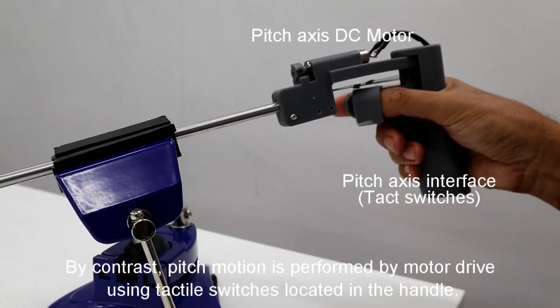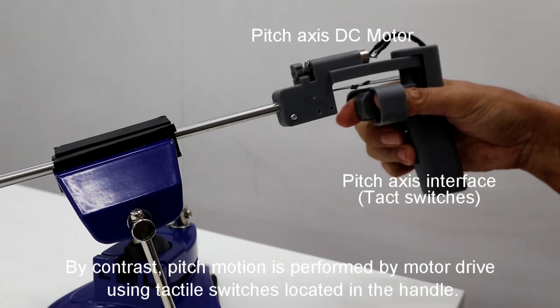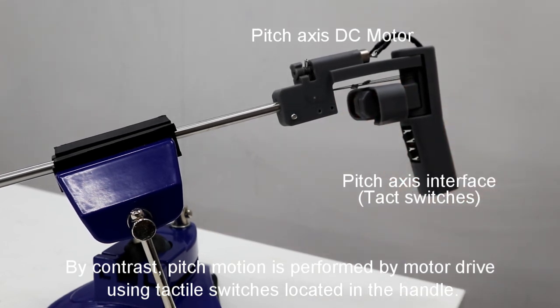By contrast, pitch motion is performed by motor drive using tactile switches located in the handle.